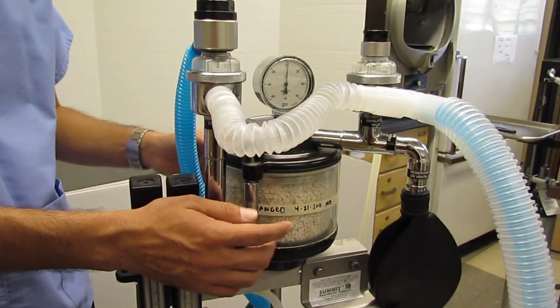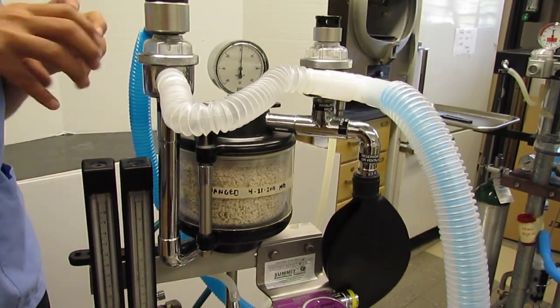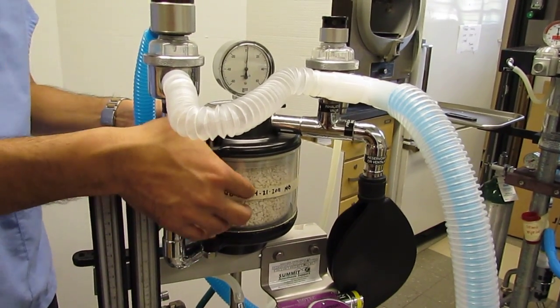If it goes into the CO2 canister, what we have in here is sodalime. The sodalime will react with the CO2 and pull it out of the circulating gas.